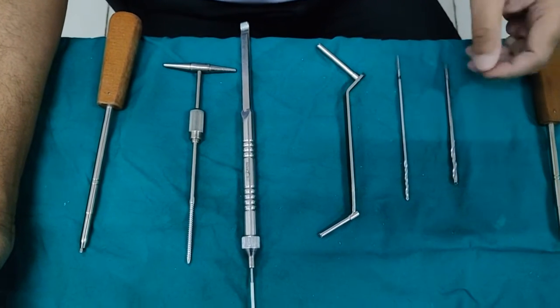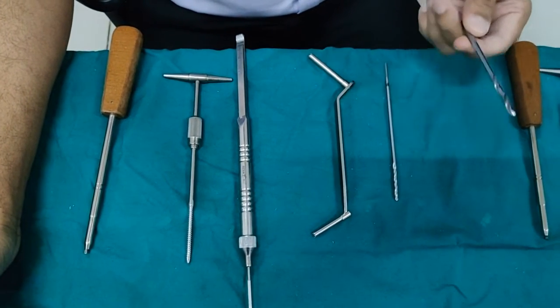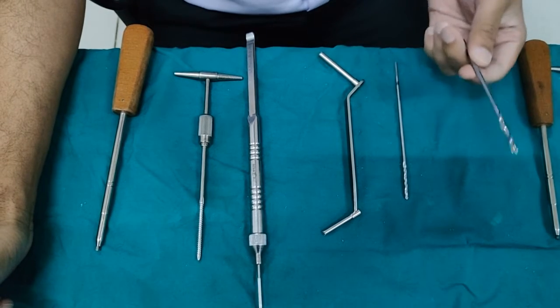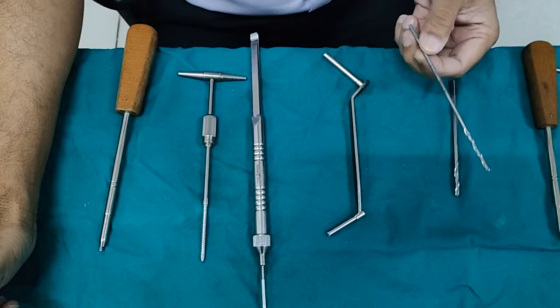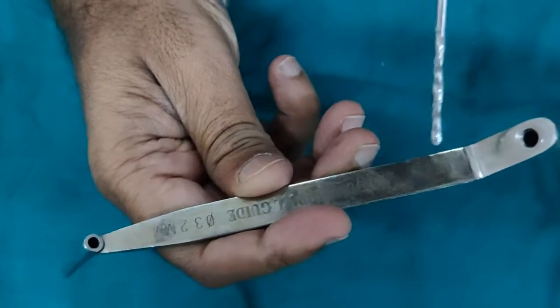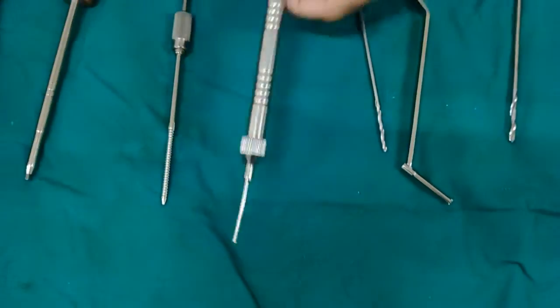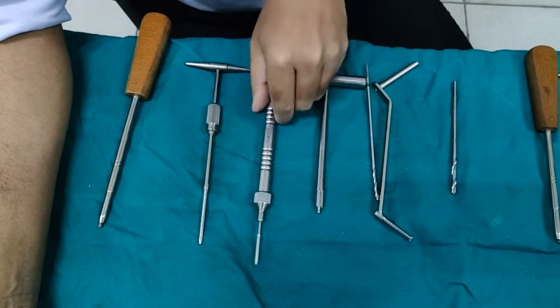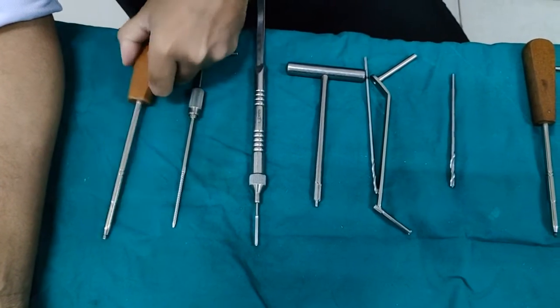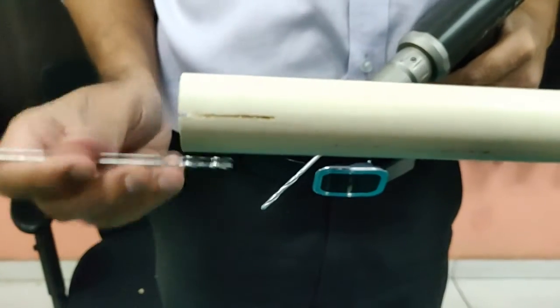Now let's look at large fragment. The gliding hole for large fragment will be 4.5mm. It's easy to remember: if you're using a small fragment 3.5mm set then gliding hole is 3.5mm; if you're using a large fragment 4.5mm screw, gliding hole is 4.5mm. For the pilot hole or thread hole you use a 3.2mm drill bit — the sleeve says 3.2 for pilot hole and 4.5mm for gliding hole. Like small fragment, you require a countersink, then a depth gauge, then a 4.5mm tap, then a screwdriver to put your right size screw.